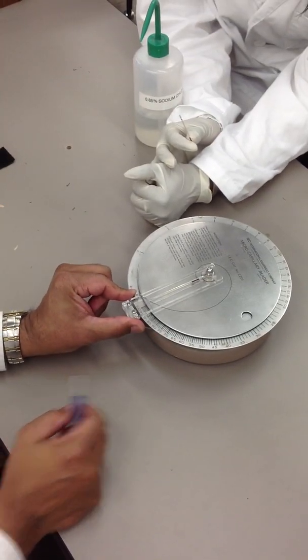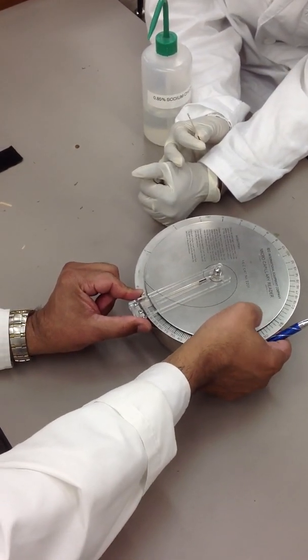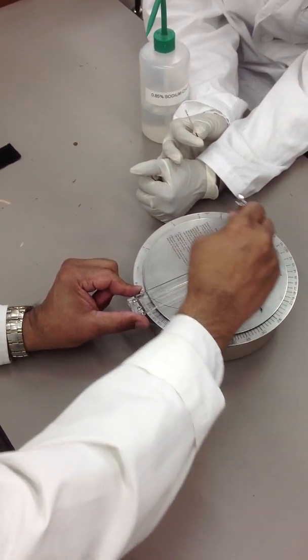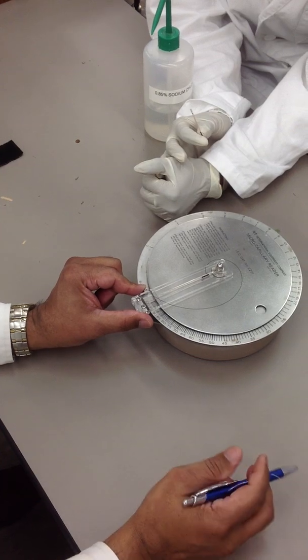And you actually will hold it with one finger. See, I'm holding it in place. So, that allows me to move this upper plate. So, the upper plate has a line. You see that curved line there? That's the reading line.